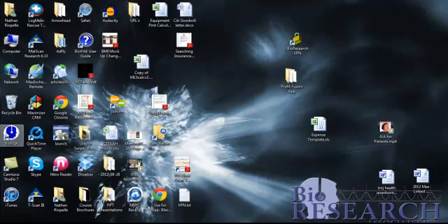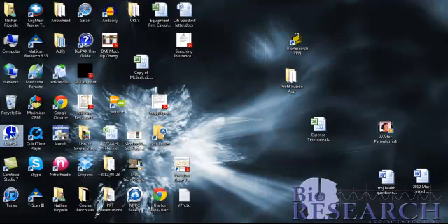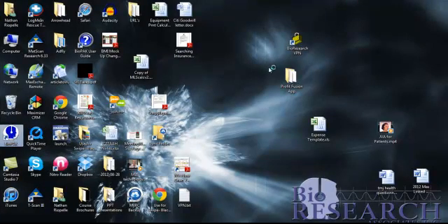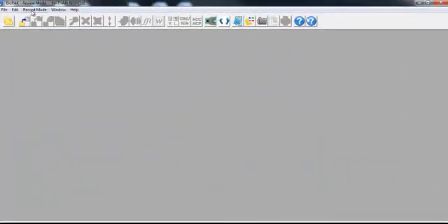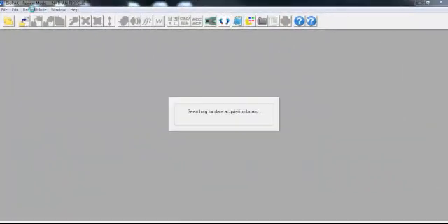So, for instance, let's say we're opening up the BioPak program. Double-click the logo there, and I'm going to go into record mode, and it's going to search for the JVA device.